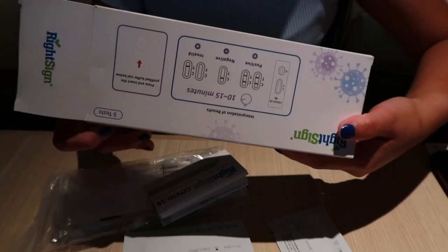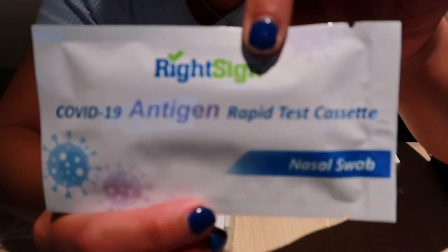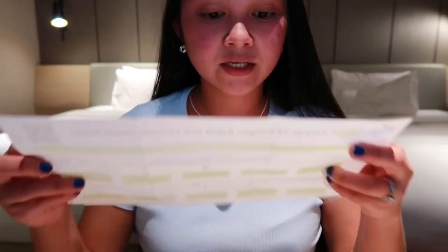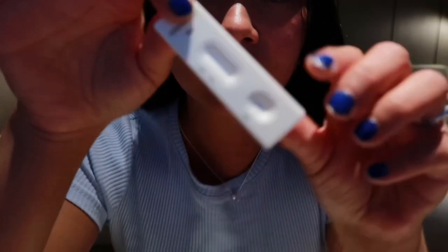This is the nasal swab. I'm going to get one and open it and try it on myself. Here are the directions on how to use it. Step one says wash your hands — I just showered so I'm pretty safe. Step two: remove the item in the pouch sealed with foil and use it within one hour. So I'm going to open this up now.